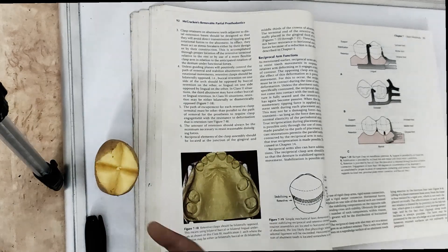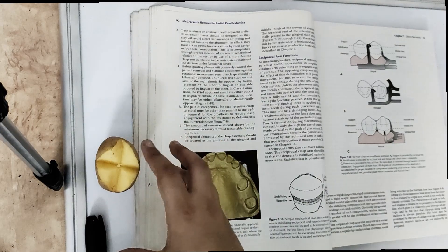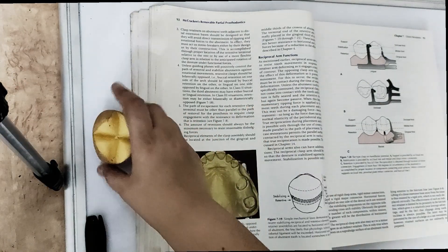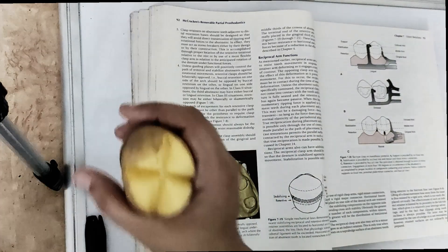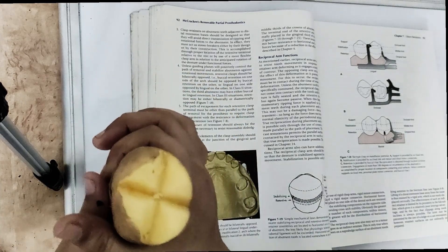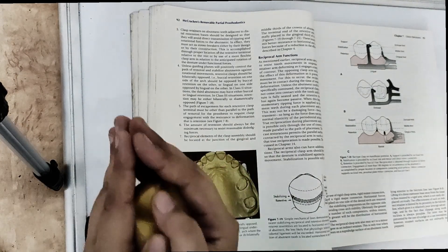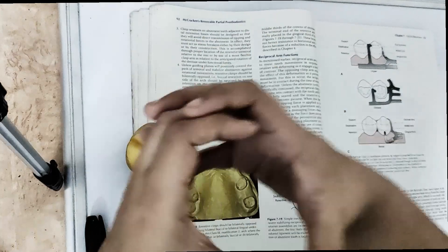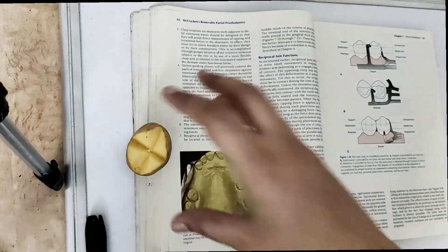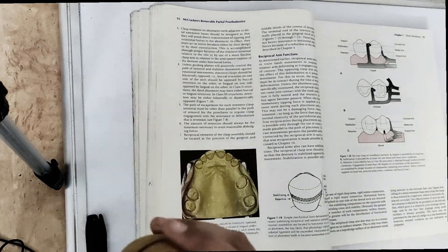So we give a clasp. The clasp assembly consists of the clasp, the rest, and the minor connector. Different kinds of rest include cingulum, incisal, and occlusal rest. The clasp is basically going to engage the tooth surface and will not let the removable partial denture come out — it is going to retain the removable dental prosthesis by engaging into the undercut below the height of contour. The height of contour is explained by the Prothero cone theory.